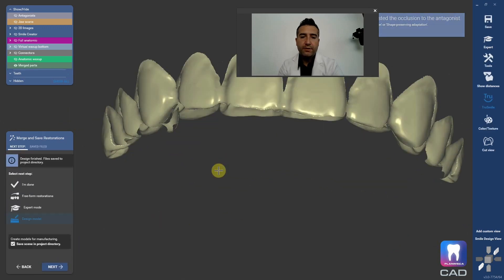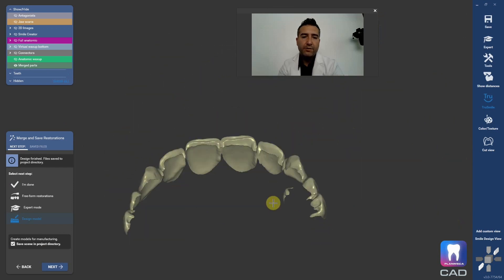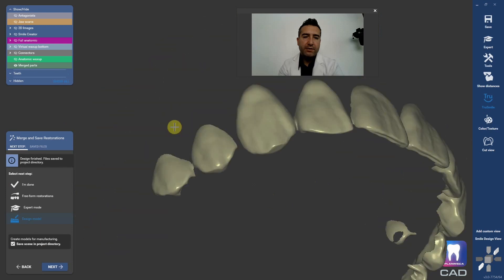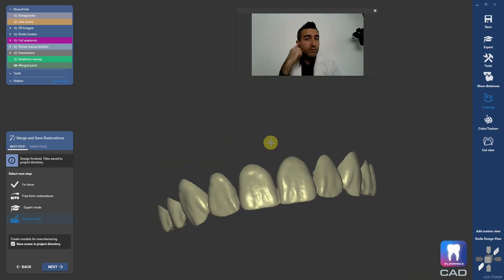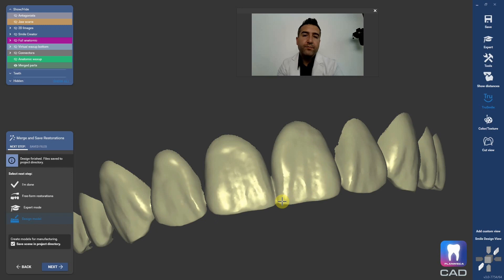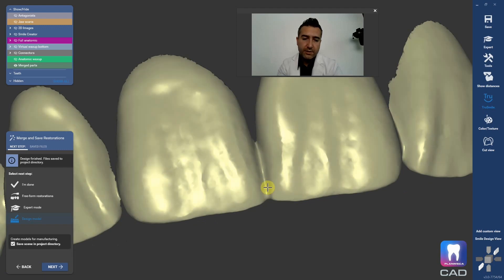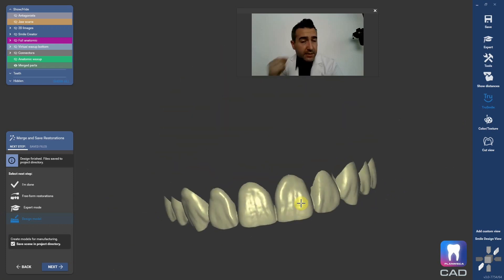And there is the final shell product right here. I might have a floater there — that's probably because I didn't melt back the linguals quite enough — but these will snap right in and fit perfectly. The way that I print them is with a raft, because if I have areas that aren't connected it still allows me to deliver them. I reline them with bisacryl, then pop off the supports in the mouth — they just peel right off, or you just do a little ET to zip them. If you wanted to wear them long term, you could etch the teeth and bond them on with veneer cement. You could even use an interproximal saw to saw through the contact so that they could floss after they've been bonded.